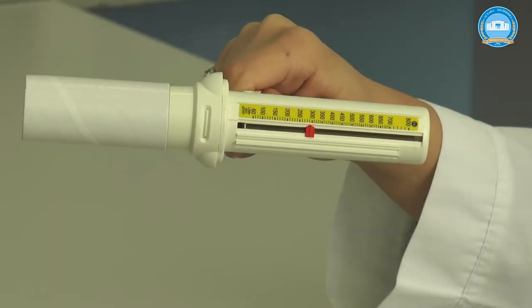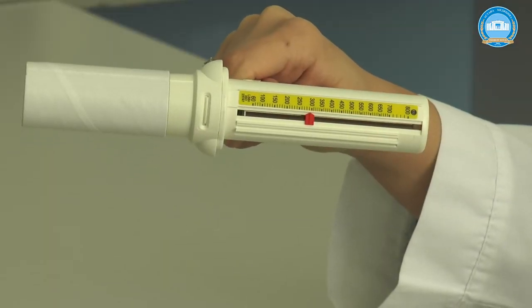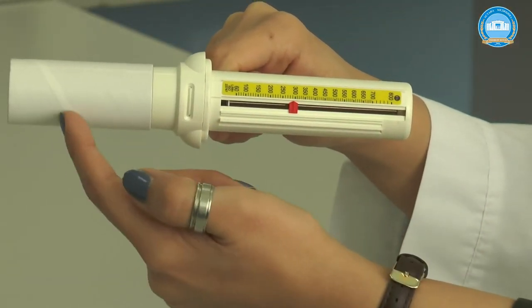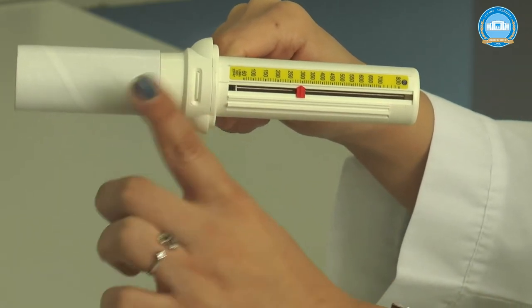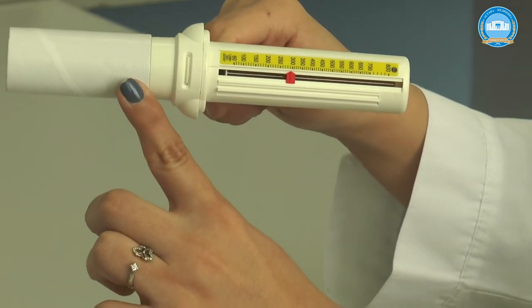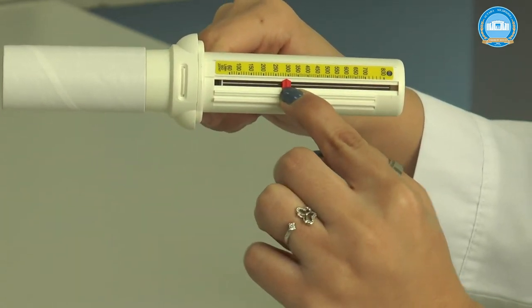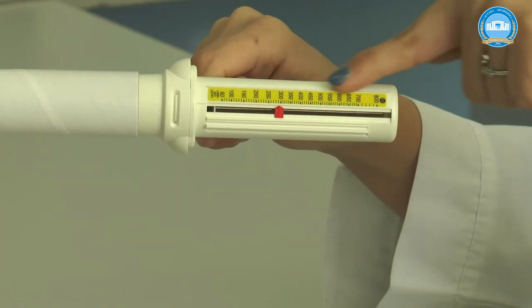Measurement is carried out by a special device — the peak flowmeter. It consists of a cylinder, mouthpiece, pointer, and scale.